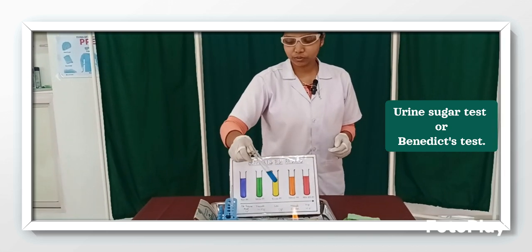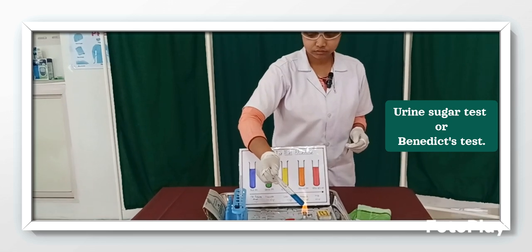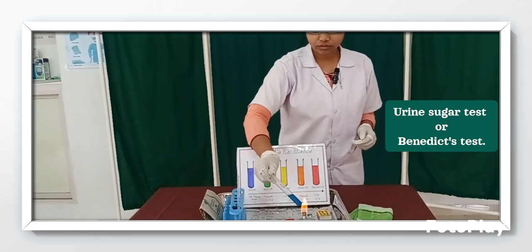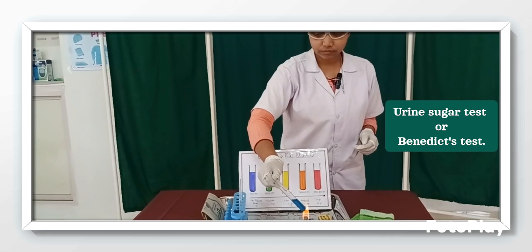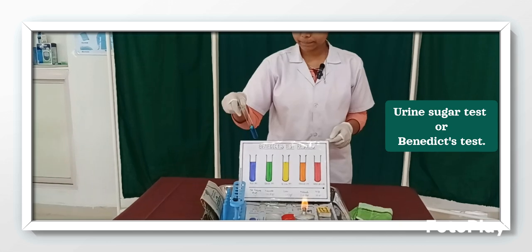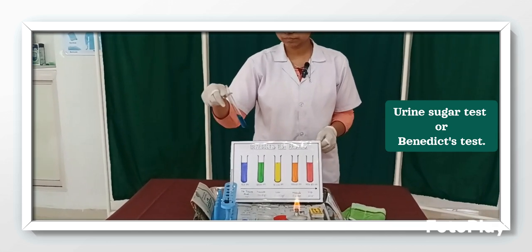After adding the urine drops, I am going to heat again to check the color change.